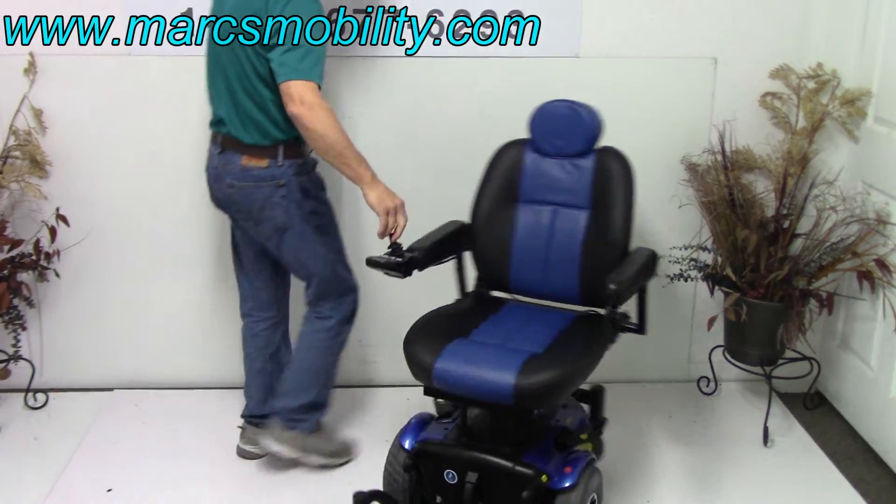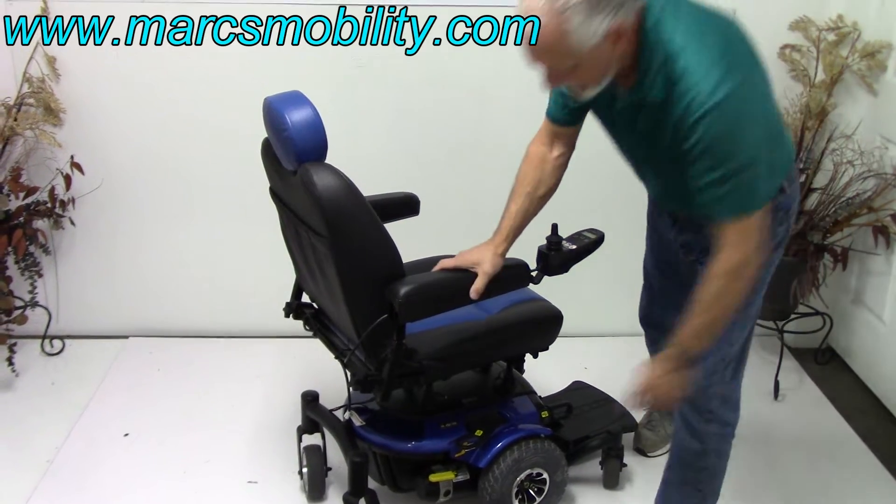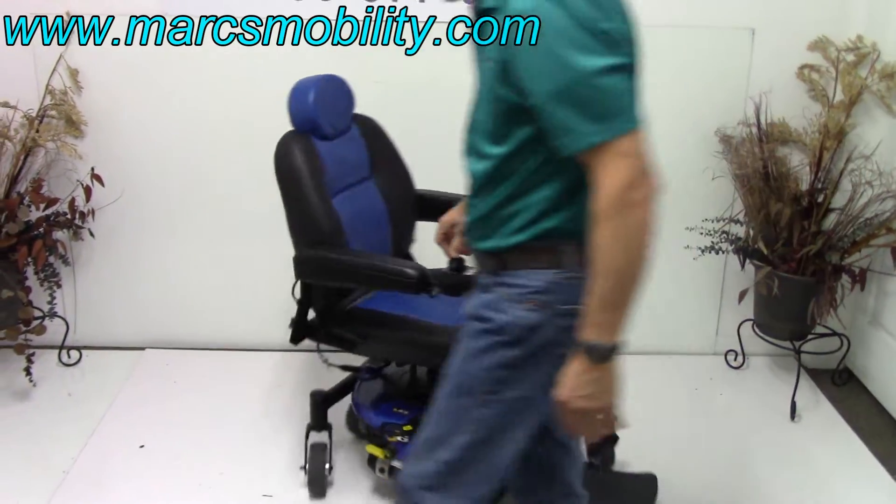So if you watch this, it turns very very well — from my foot here to the back there, it'll turn in that circle all day long without moving.